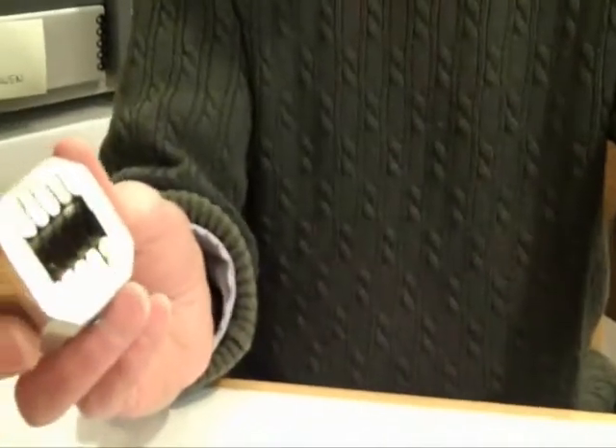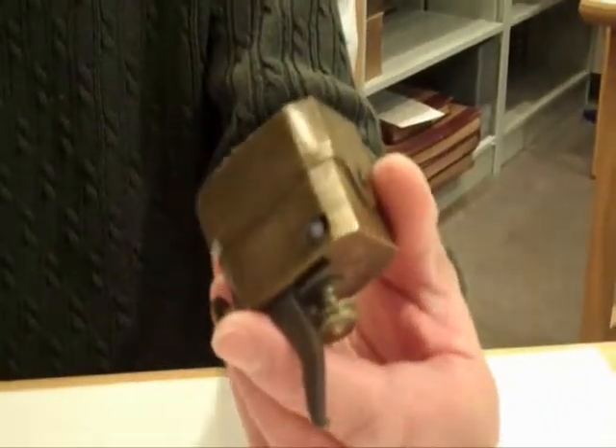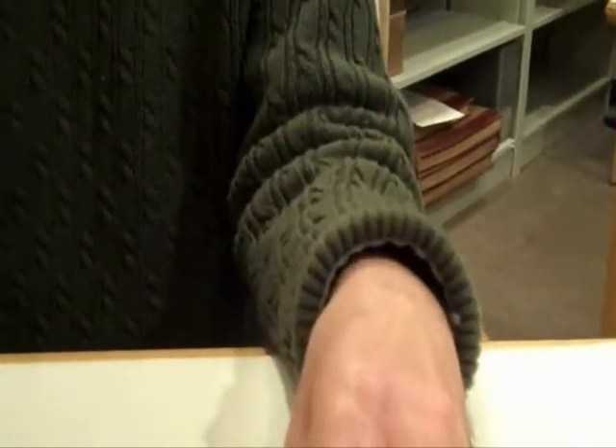Normally these mechanisms would have 12 blades — that was the average. Some would have a few less. These are probably all 12 blade scarificators, yes.